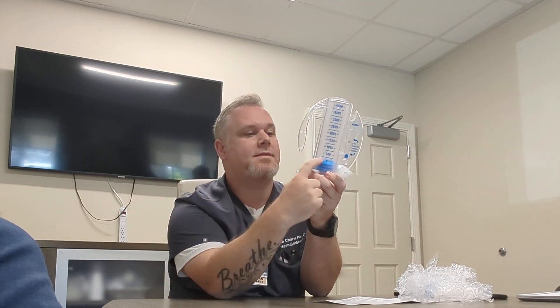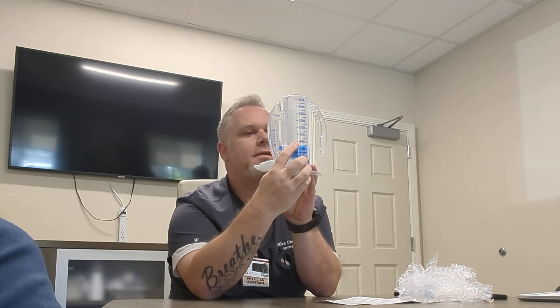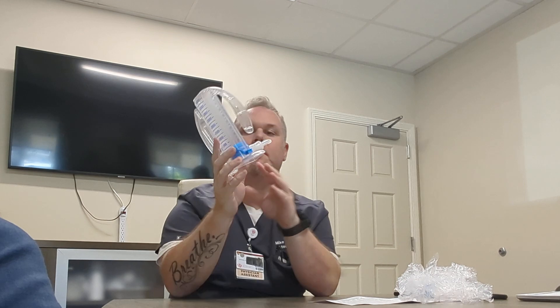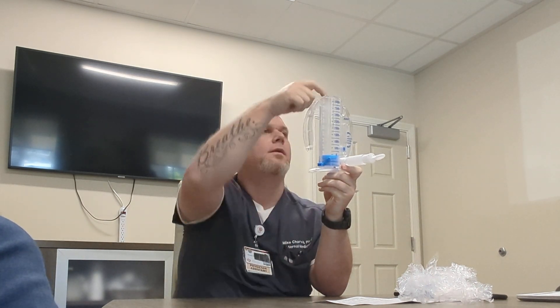Start at the end of expiration, inhale until you can inhale no more, and make note of the piston. The piston has a top and a bottom - it's the top that we measure. So that puts me at about 1,000 right there at the top. That makes sense because the bottom isn't actually zero when you're breathing through it.